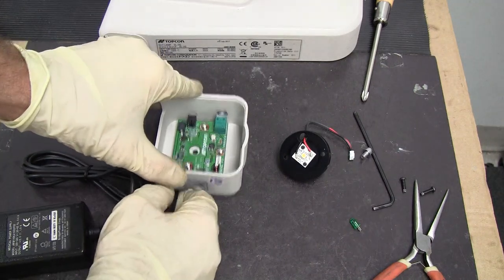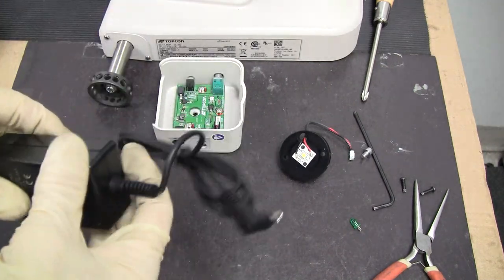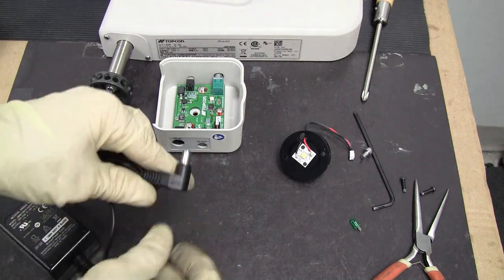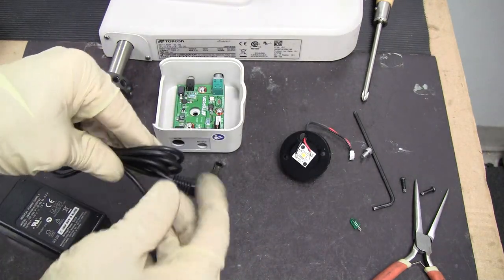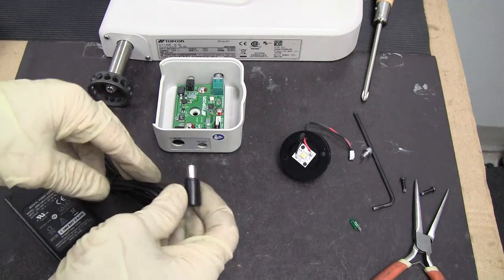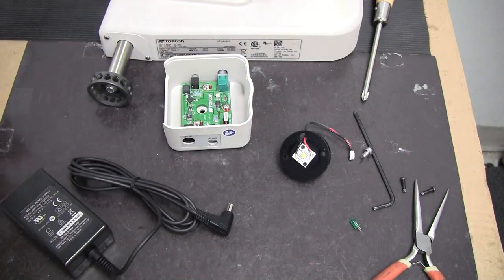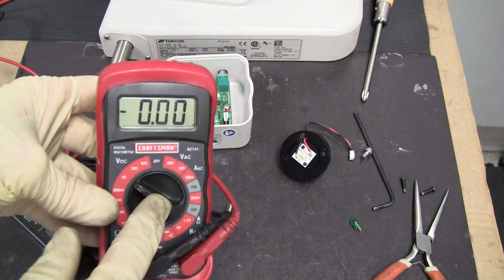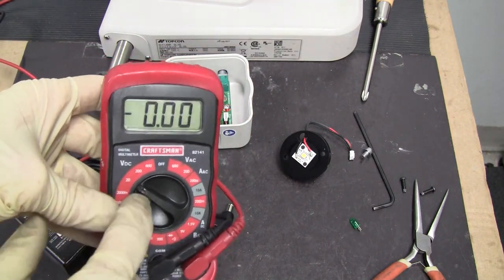You can check your power supply with a meter. These are supposed to put out 15 volts DC, so you can put your meter on volt DC.